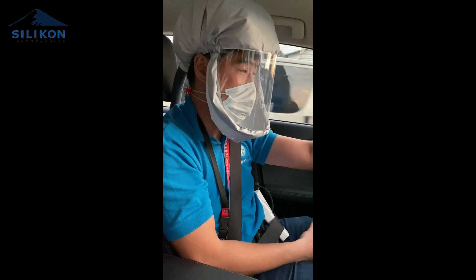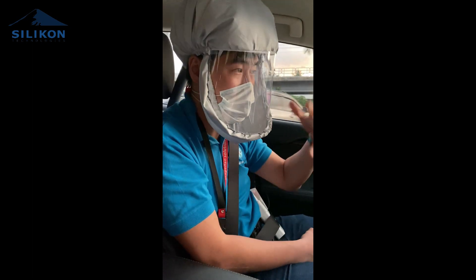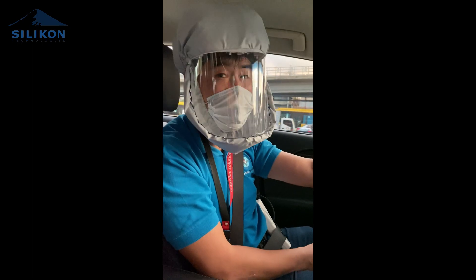I think that the full hood with the skirt gets a bit bulky and very difficult to manage, so this one's a lot easier. Please give us feedback and we do appreciate that.